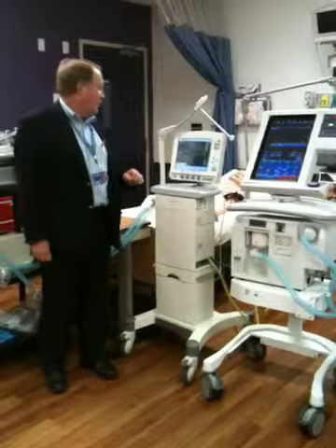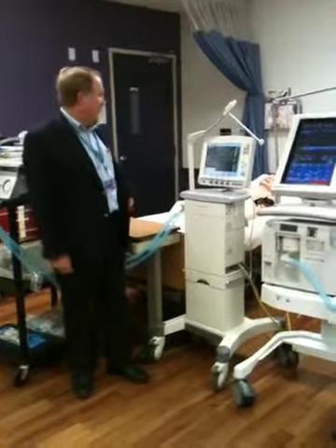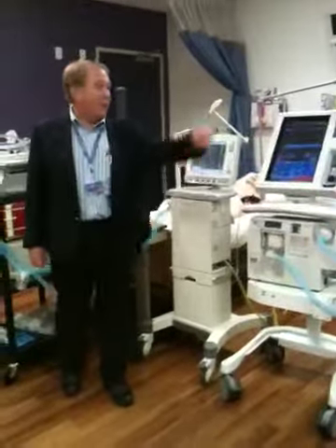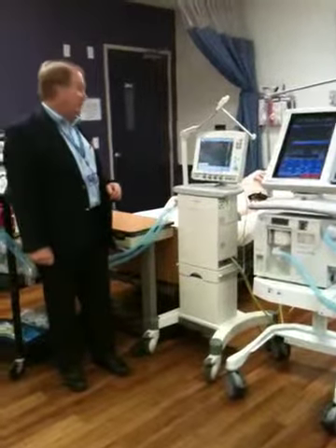So 12 minus 5 is 7. Divide that into 500, and I know what my static compliance is. It will only calculate it over a long trend. Some of them will do one breath. The Draeger does it on a single breath. It does a breath hold and then releases, and it only does it when you ask it to do it.